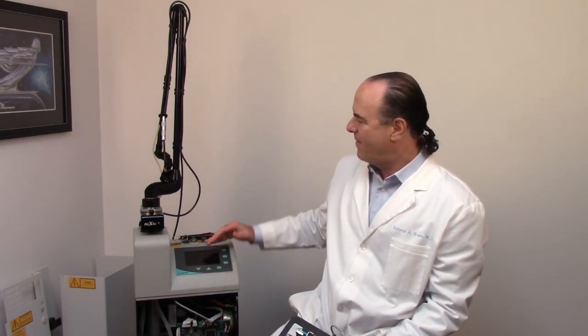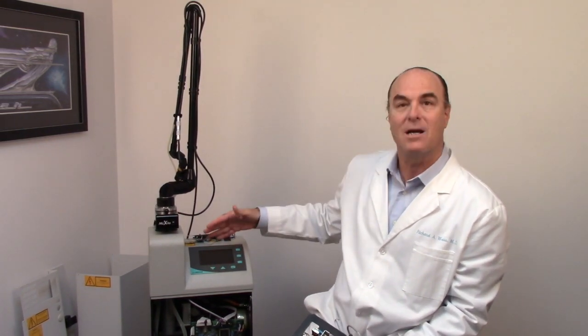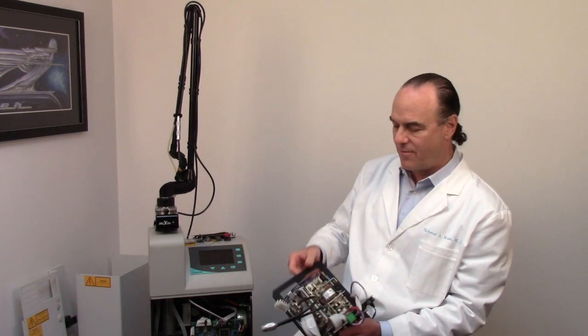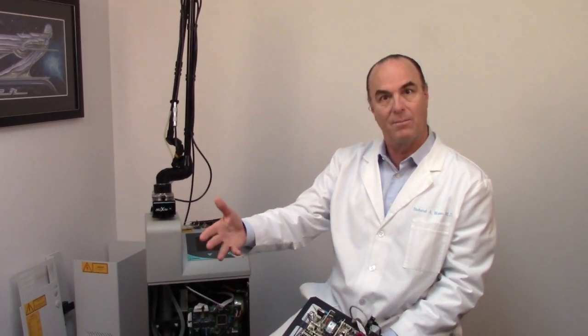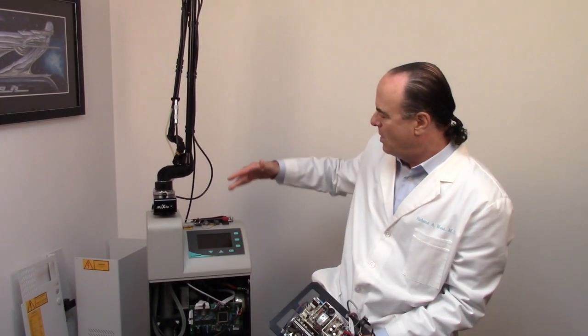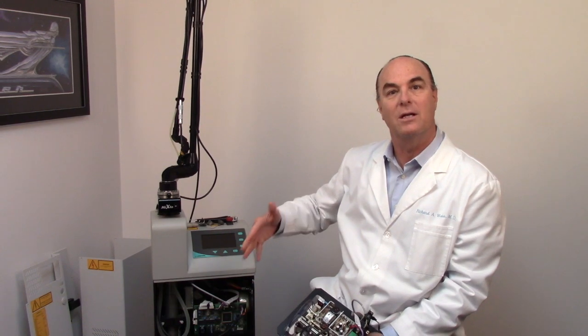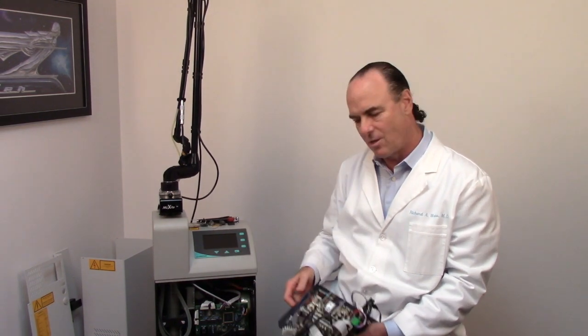Now these machines are very complex and we have to maintain them regularly so that they work properly and calibrate them. I'm going to take this opportunity while we're in the middle of maintaining our machine, which is actually kind of time intensive and expensive, and that's why these procedures have some considerable cost to them. I'm going to use this as a learning experience to actually show you what's in the laser, so come on and take a look.